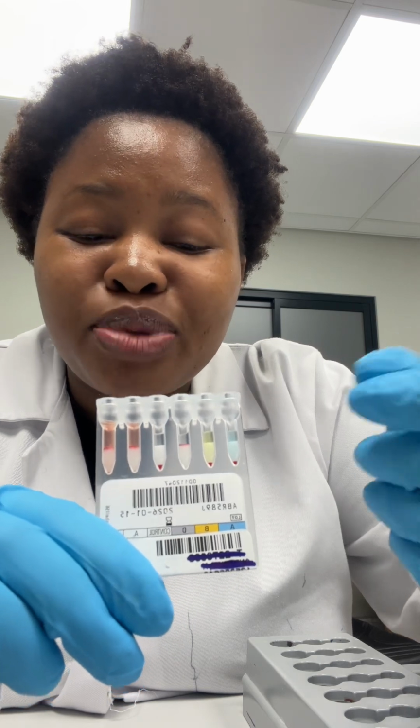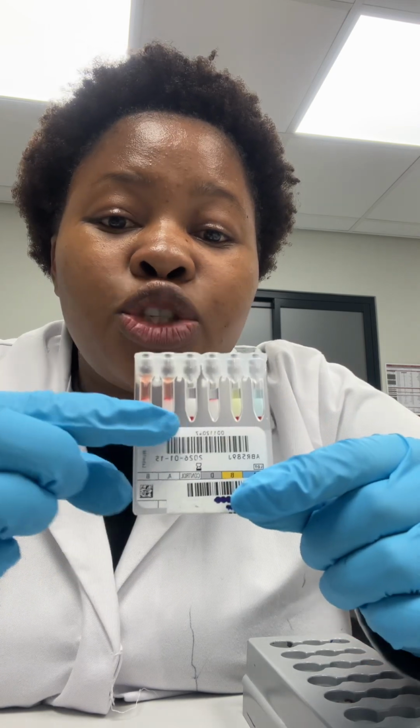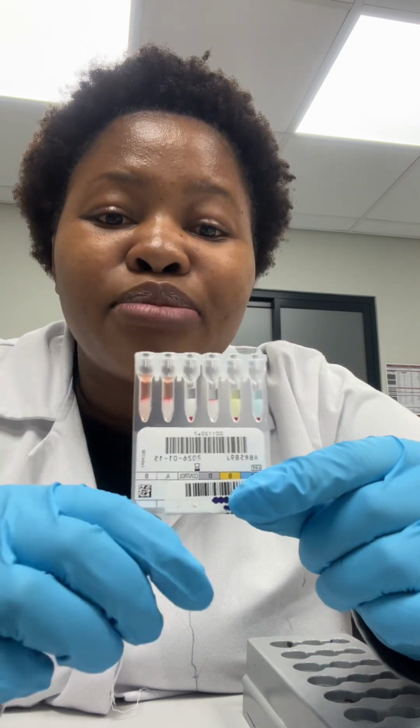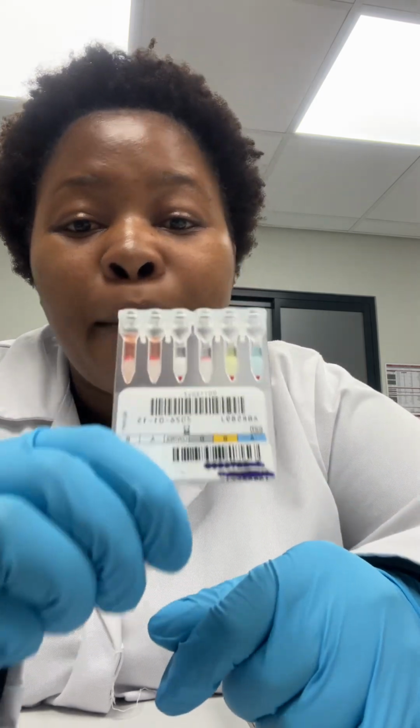The law we use in the ABO blood group system is that if you do not have these antigens, then you'll have the corresponding antibodies. In this case, the patient does not have A or B antigens, but they do have A and B antibodies in their plasma. So we can confirm without any doubt that this patient is O positive.